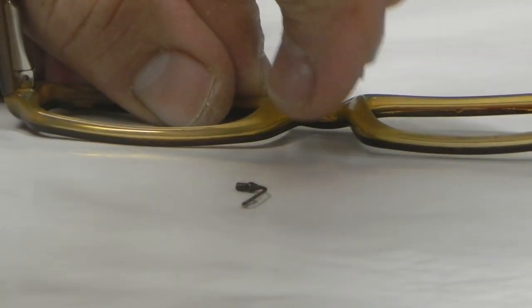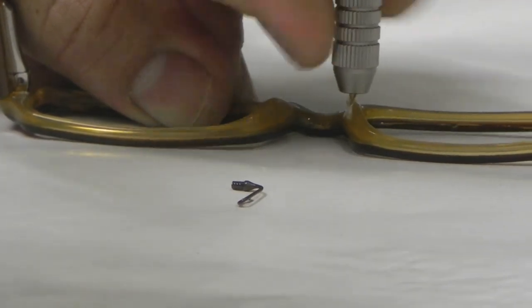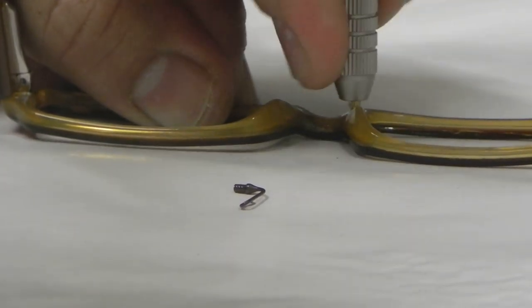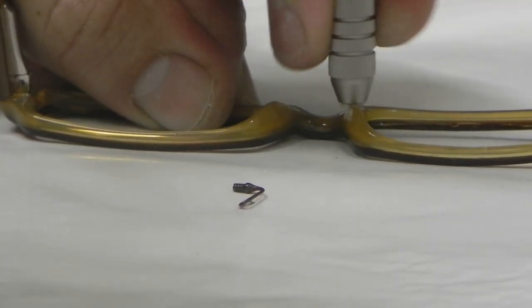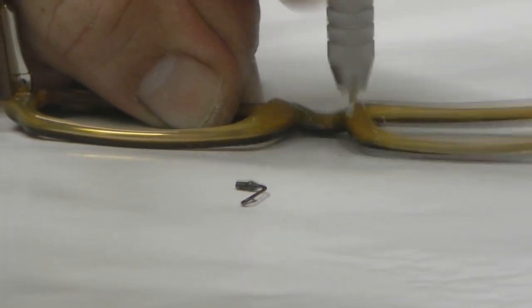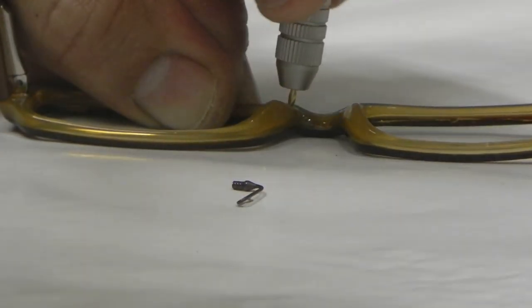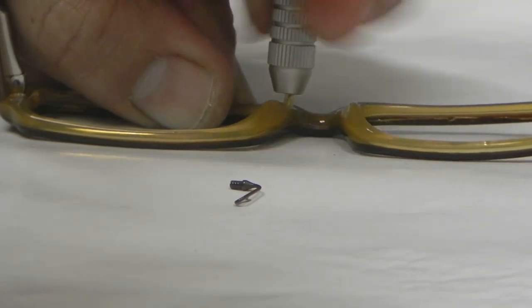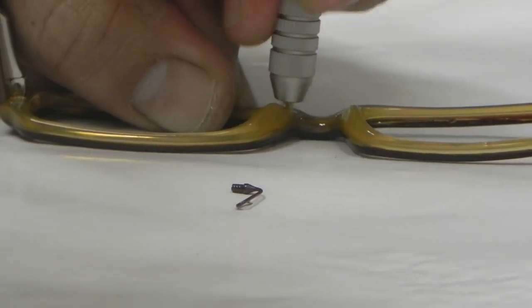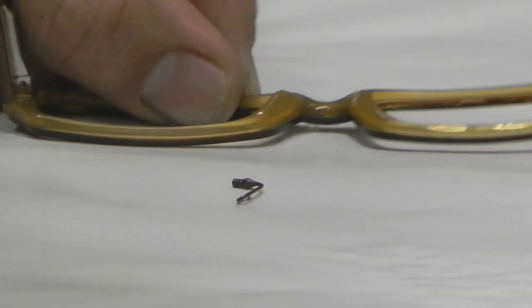As you will see, this is a very, very clean mount. There is no heat involved. There are color-coordinated titanium pad arms. Now what Mike is doing is he's custom-fitting the pad arm by hand-drilling a hole whose depth meets the exact length of a pad arm. This will not go through the front — this has already been pre-measured. This will be a very, very clean compression mount once we're done.